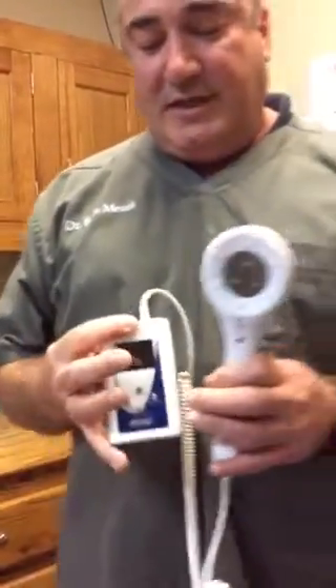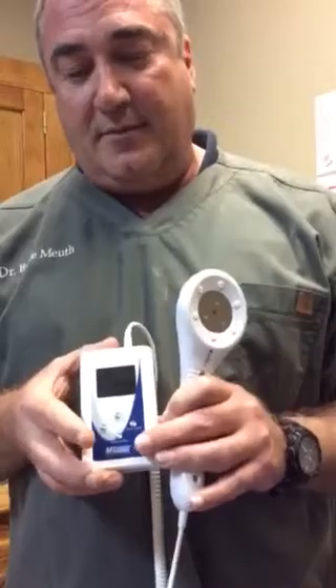The end result is we just have a new laser system with all the same great capabilities, but with new characteristics that make it so much handier, nicer, and end-user easy. It comes with a single probe as well, and we've also got another probe that's mainly used for acupuncture applications and trigger point treatments. A lot of veterinarians use it for that and really love the ability to pinpoint a certain area.